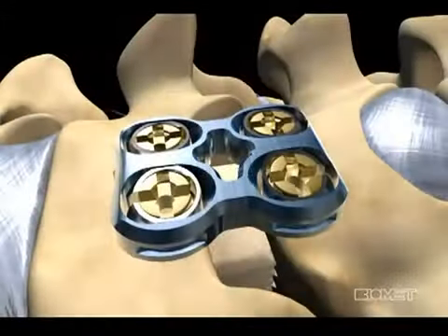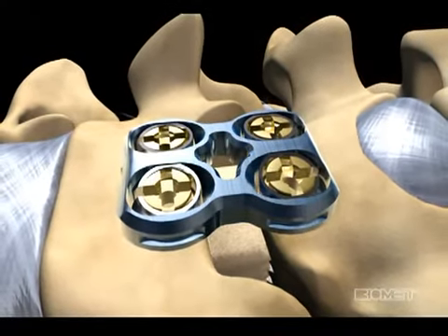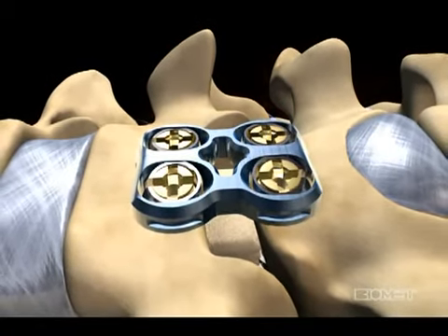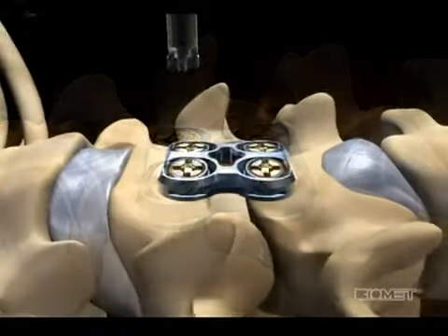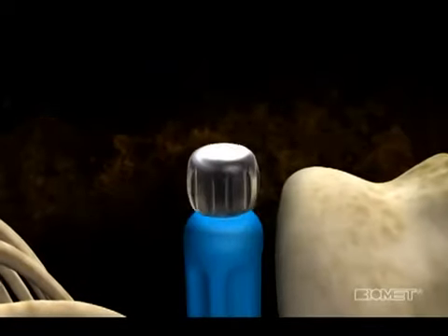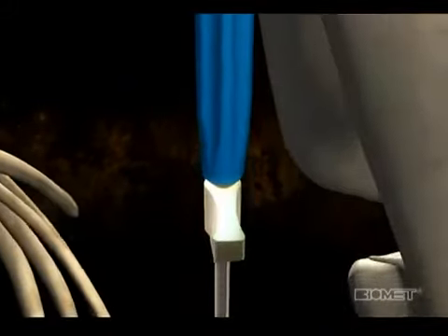Screw removal. In order to remove a screw from a MaxAn plate, the ring needs to be held in place while the capture mechanism is disengaged. Once this is done, the entire screw can be removed. Thread the screw remover sleeve onto the screw inserter and seat the cruciate tip of the screw inserter into the cruciate on the bone screw. Turn the black knob on top of the inserter clockwise until it fully engages with the screw.